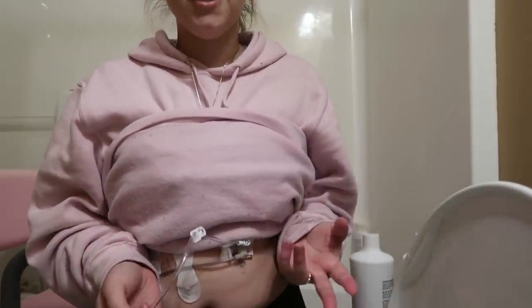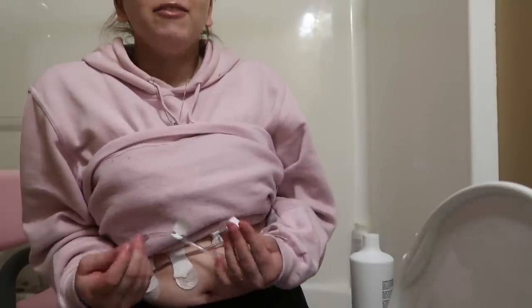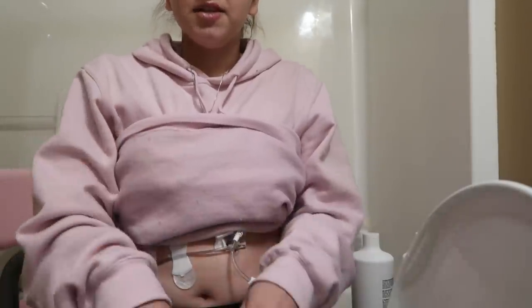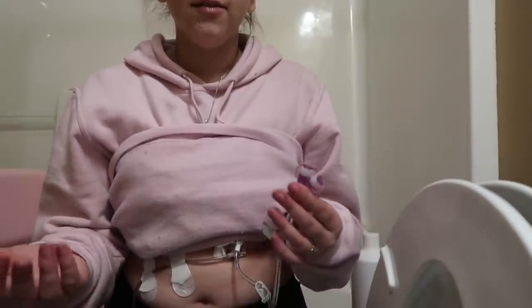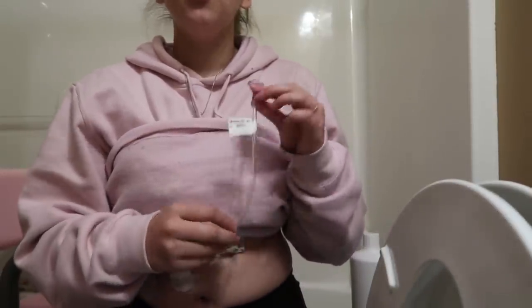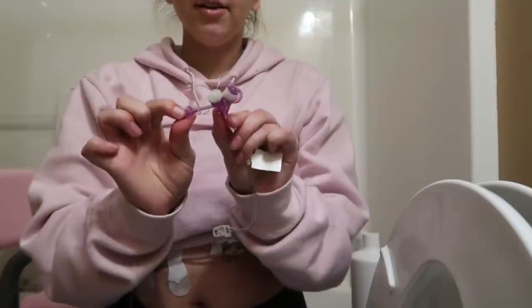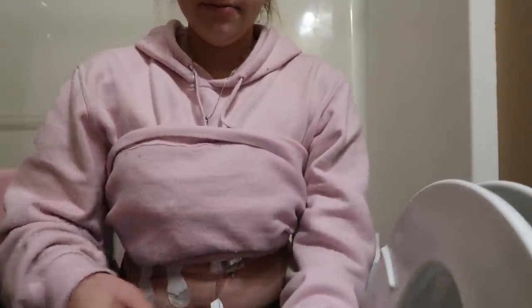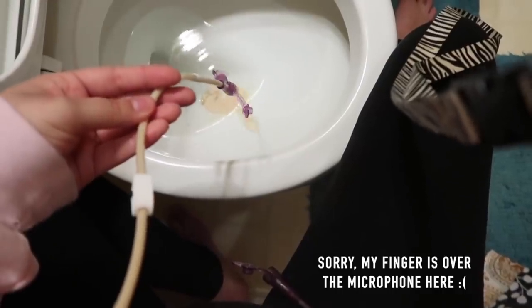I had some coffee this morning because I love coffee, but I can't really digest it very well. What I do is try to keep it in my stomach as long as I can, but if I start to feel sick or like I'm going to throw up, I'll drain some of it out. I'm sitting over the toilet right now — I can use a syringe or just let it drain directly over the toilet, which is what I'm doing right now.